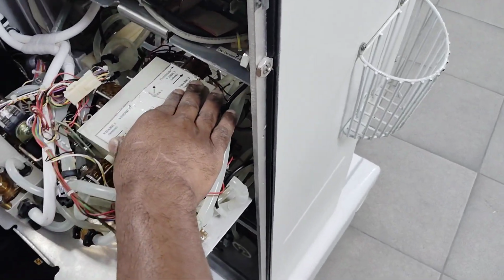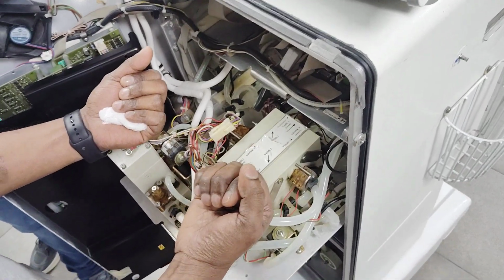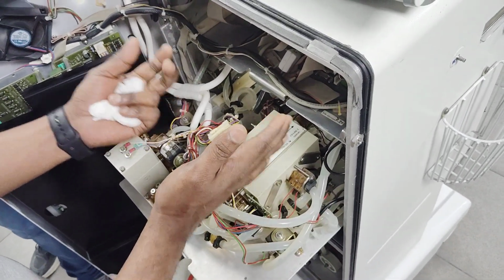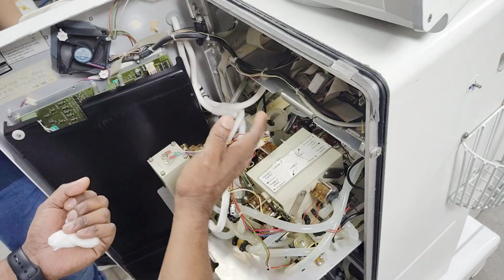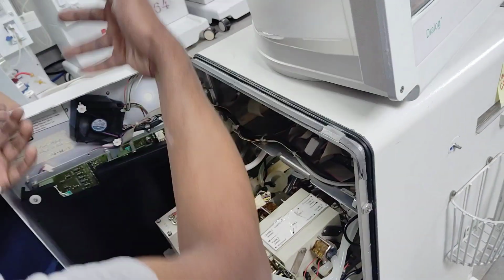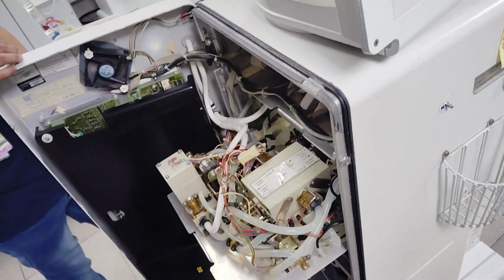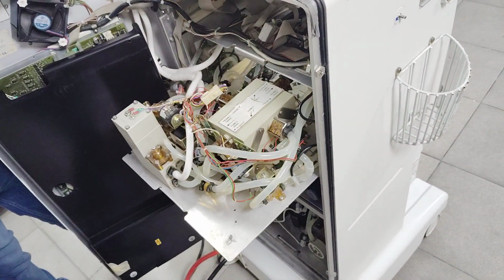Basically, what it is trying to do is take the fluid and send it to the balance chamber through the membrane. It balances the fluid taken from the patient side and the good water, and throws part of it to the drain. The remaining part is in contact with the blood. So whichever concentration is prepared will be in contact with the blood.